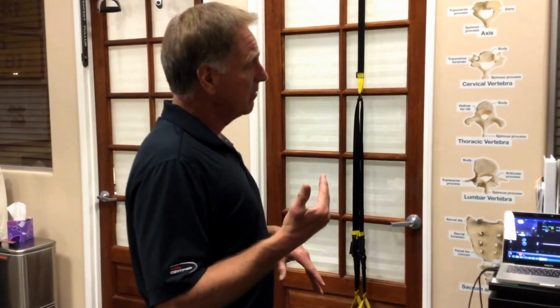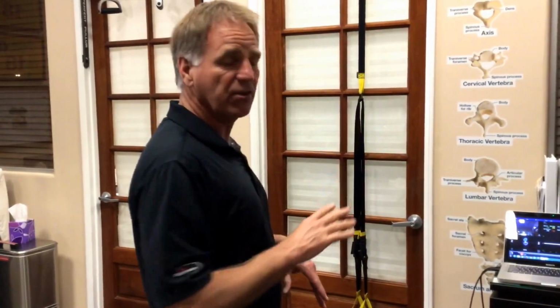But today, my number one thing to do with every patient is to have them centered on the Boditrak, and have a look at their lateral shift and COP. It tells me a lot about their general posture distortions, everything from an IT band to a knee problem to an opposite shoulder and neck problem. All these things start to fit together, and it's very easy to explain to the patient when they see it graphically.